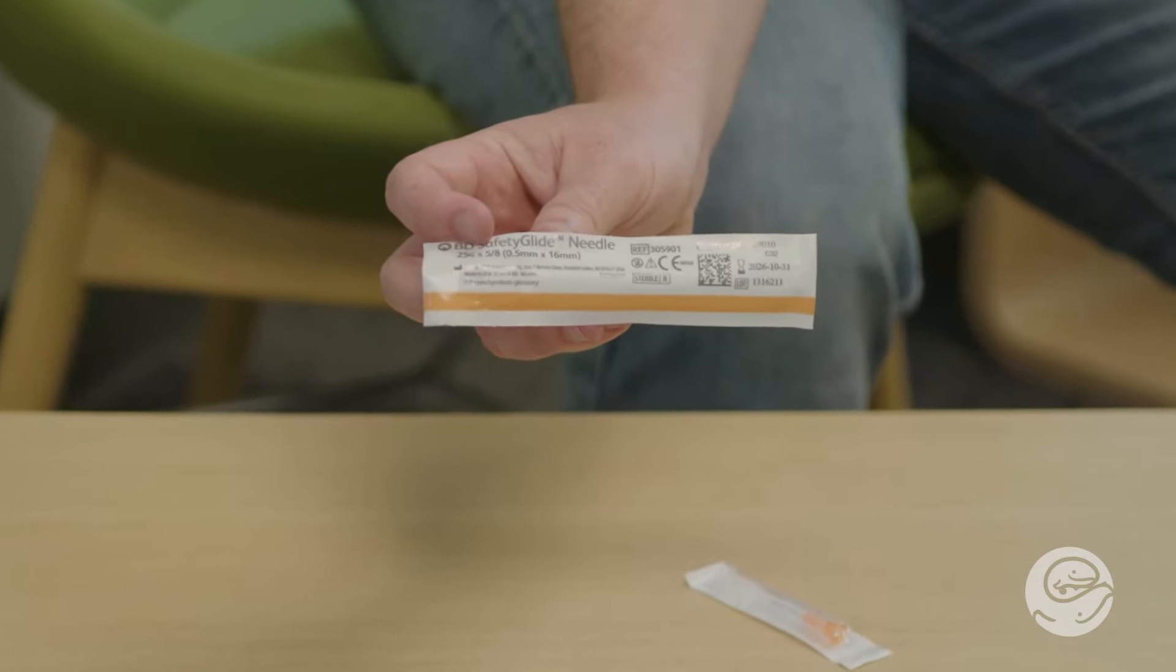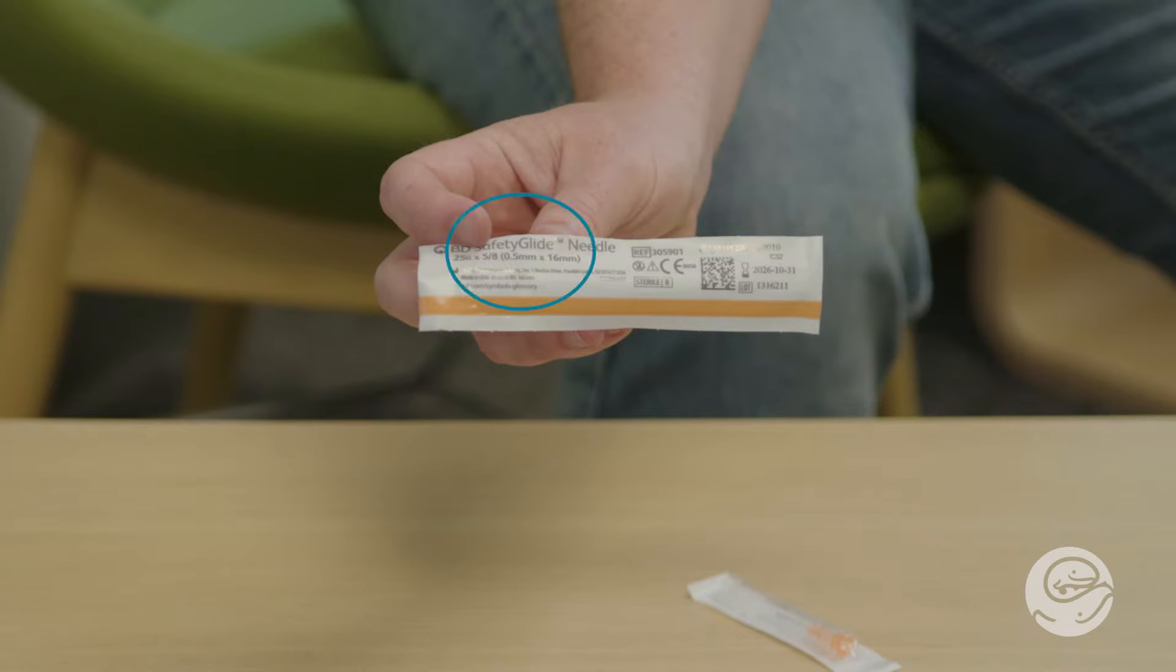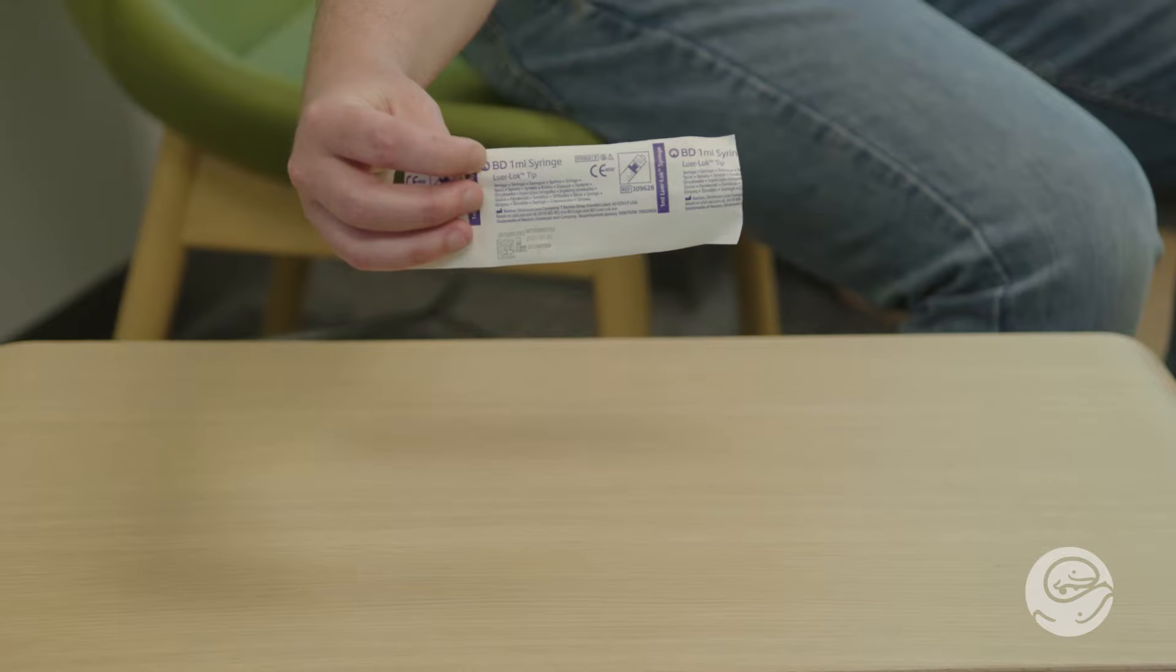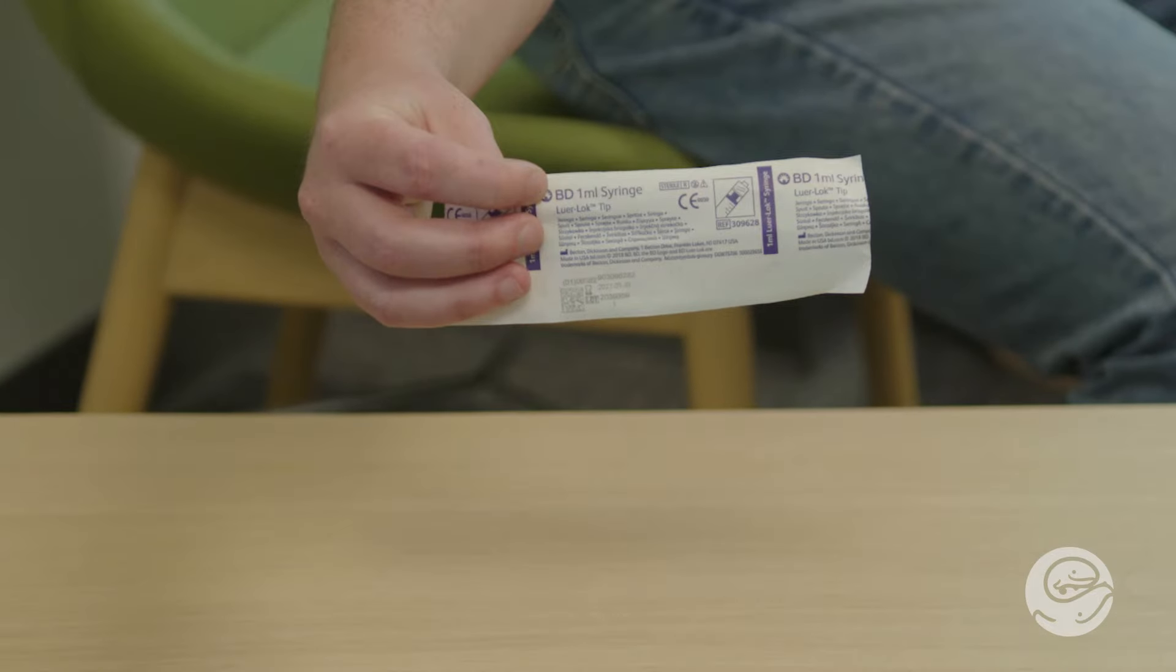Here is how to find the gauge, or thickness, and length of your needle. Use a 1 mL syringe. Do not use larger syringes such as a 3 mL or an insulin syringe. This measures in other units, because they will not be accurate for the dose you need.